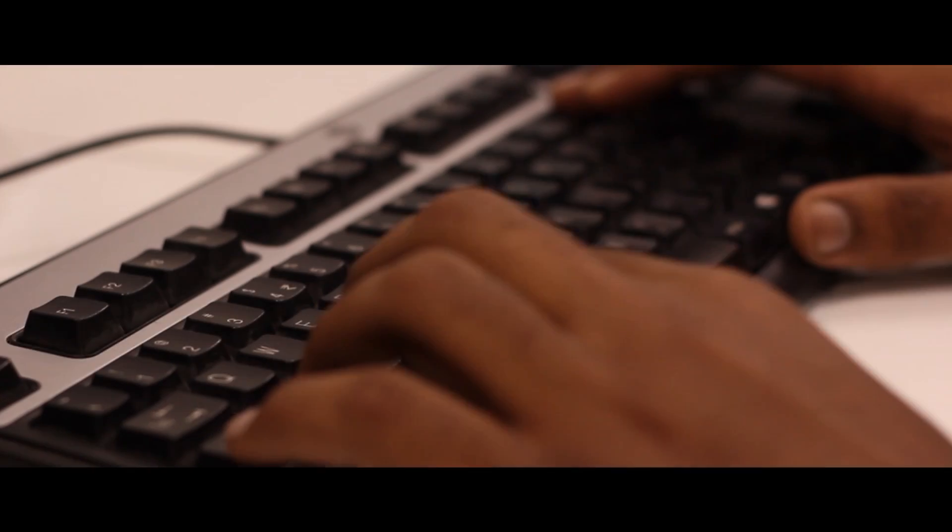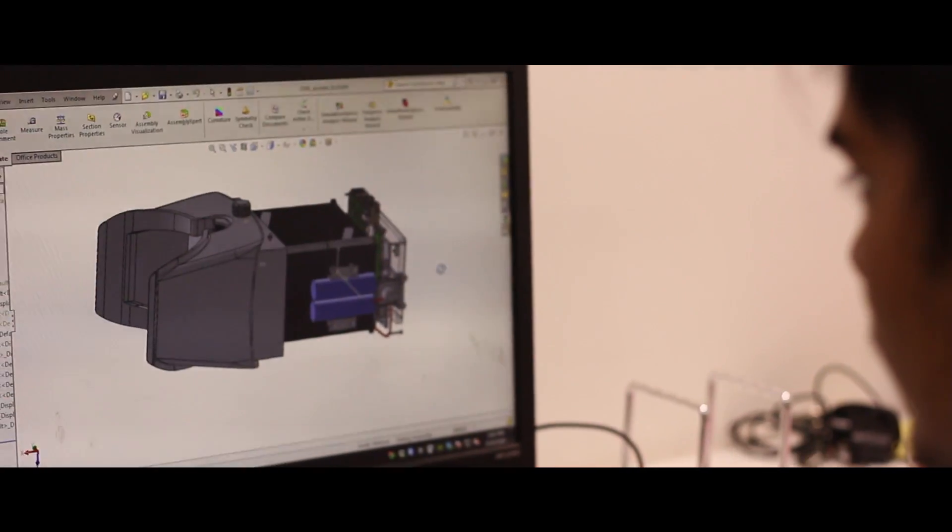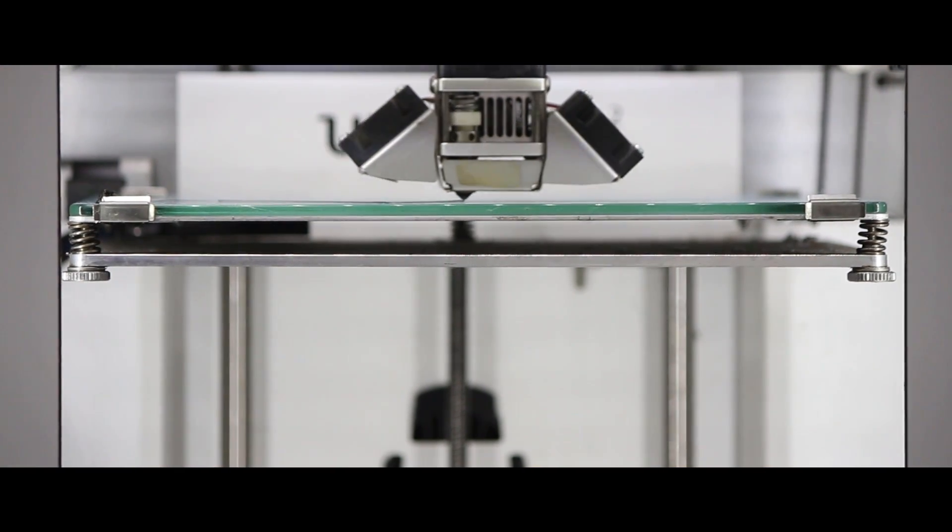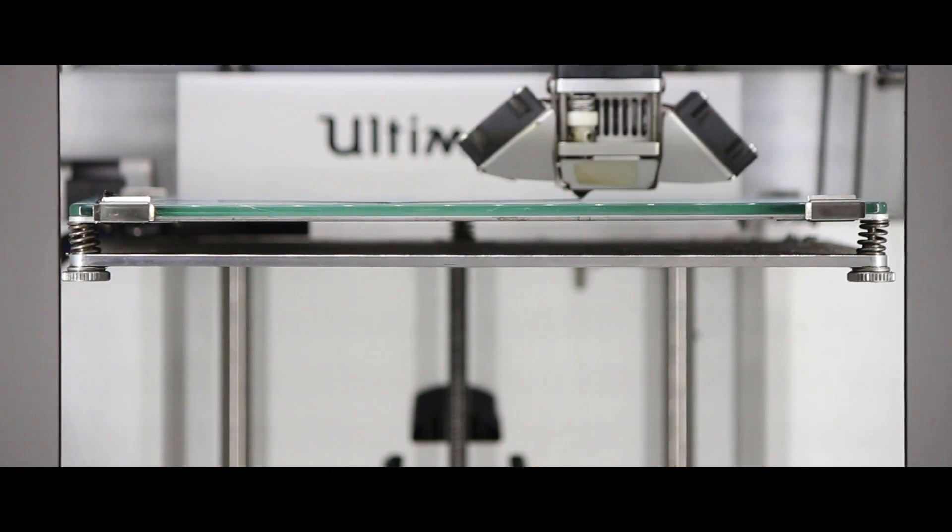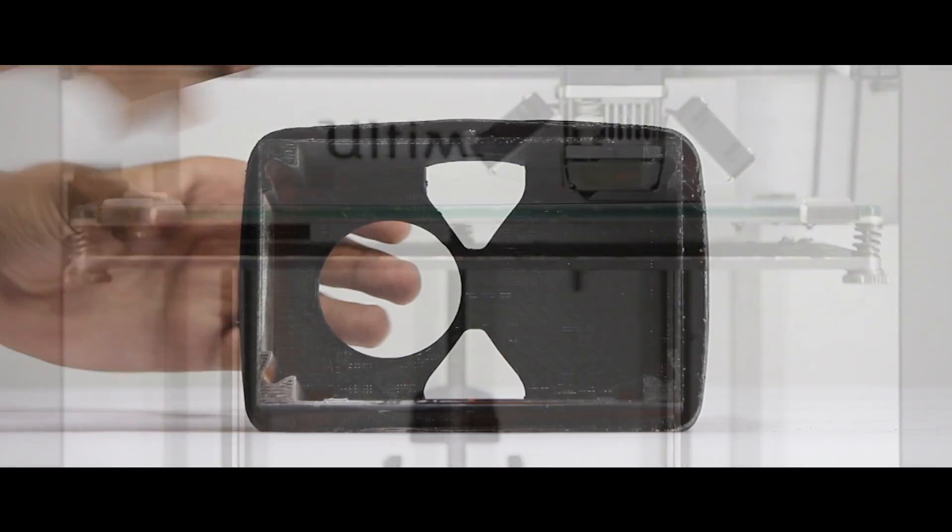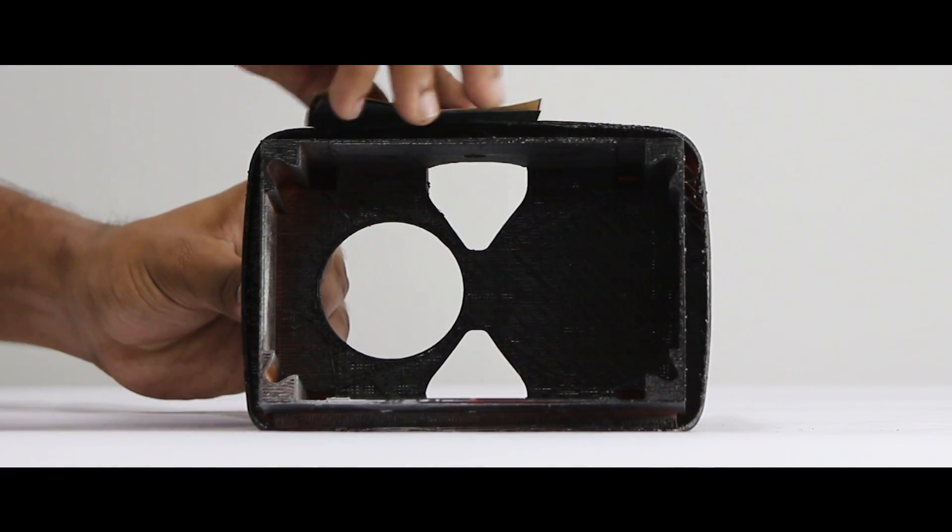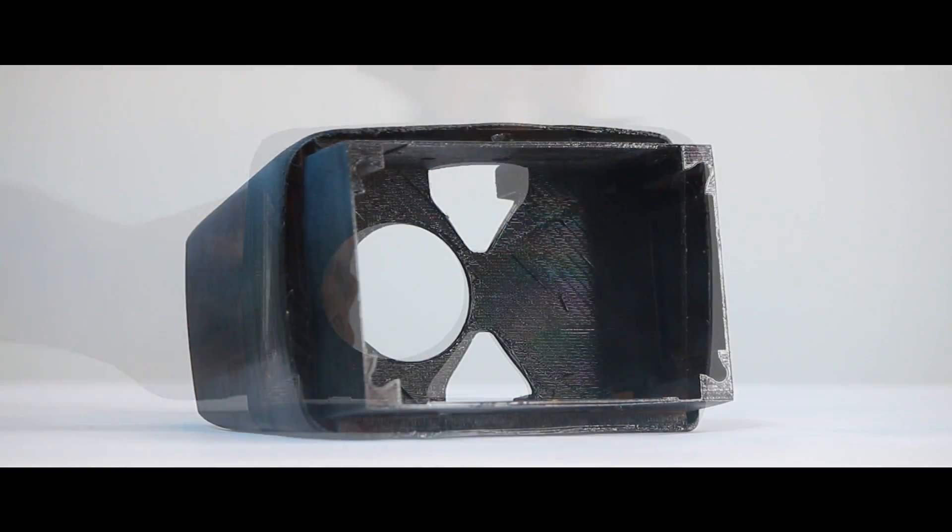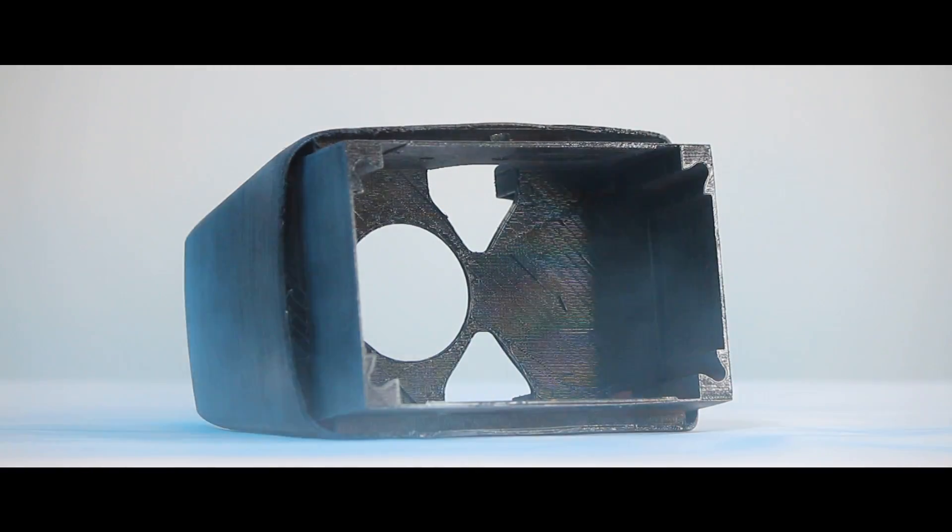The OIO sets a new standard for design and manufacturing. Open source hardware, redesigned optics and 3D printing allow the OIO to be built for a fraction of the cost of conventional diagnosis devices and yet maintain the same quality.